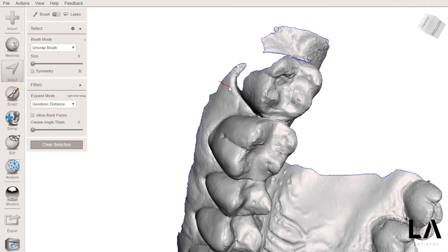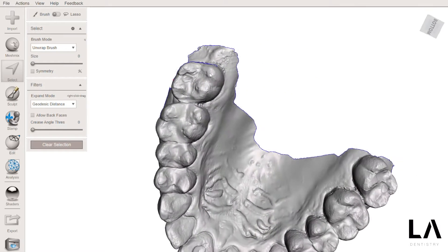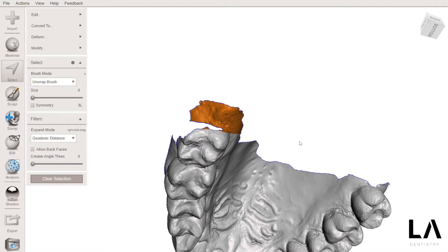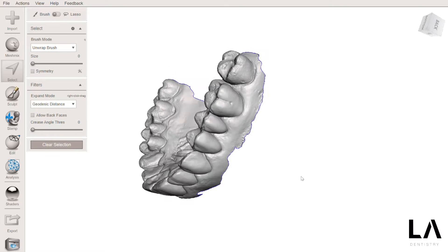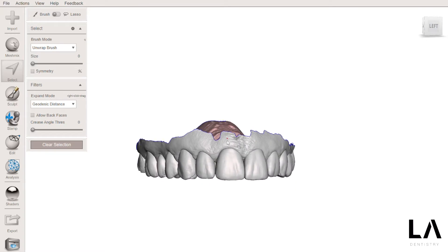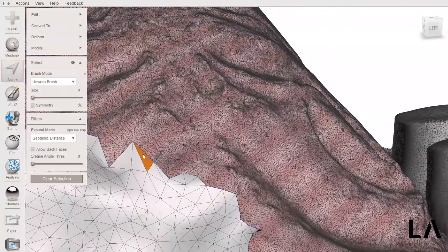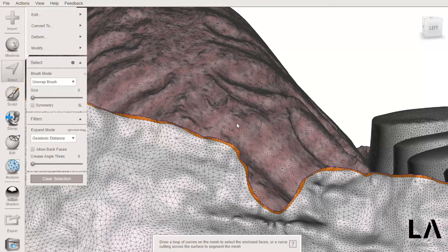Maybe here I should close this too. I don't want this part — maybe this one is not needed. Here I can take this; maybe here also I can make a little adjustment. Let's take a look if we can do it now. Press the letter W and go into the border to see the last triangle, then press the letters O, B, A to check if everything goes just fine.